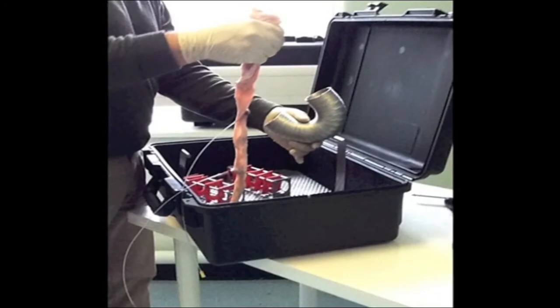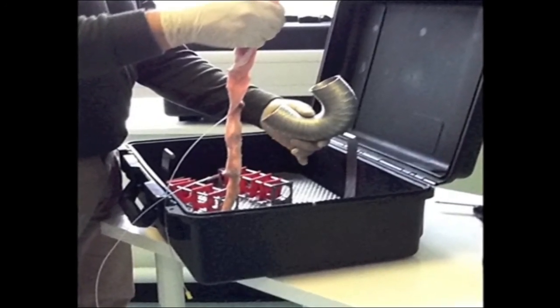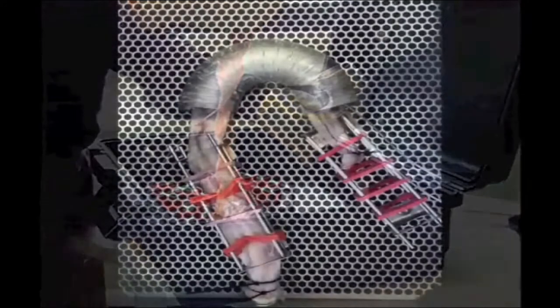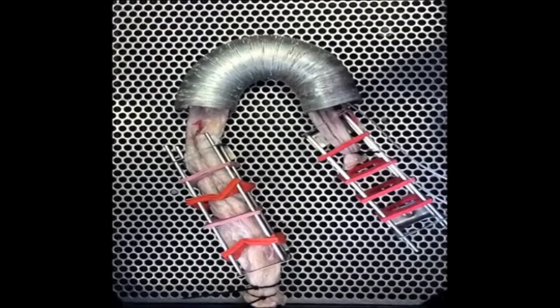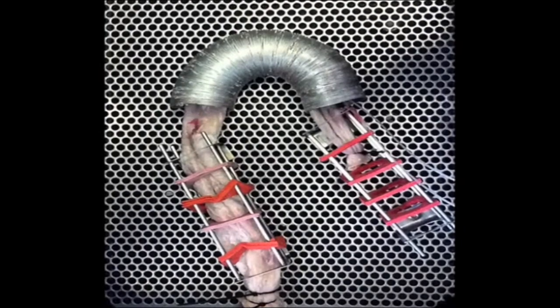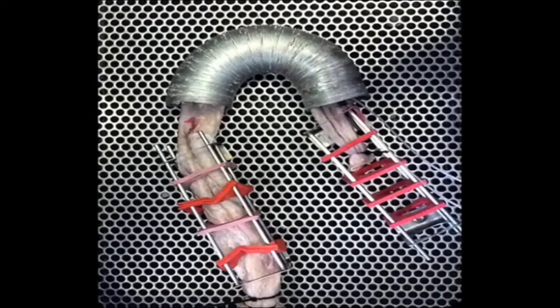Once the porcine specimen is made, it is inserted into the plastic casing. It is passed through the inside of foam segmenters and a curved exhaust pipe, and then through a second set of segmenters. The anal end of the specimen is then attached to the laparoscopic port, and the oral end is secured airtight. When the bowel is inflated, the foam segmenters indent on the serosal aspect of the bowel to represent haustral folds.